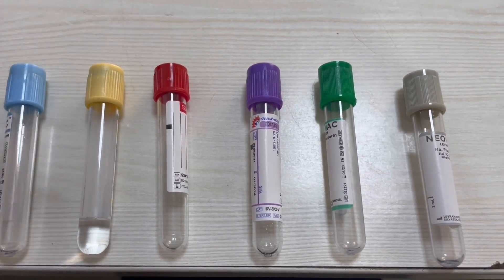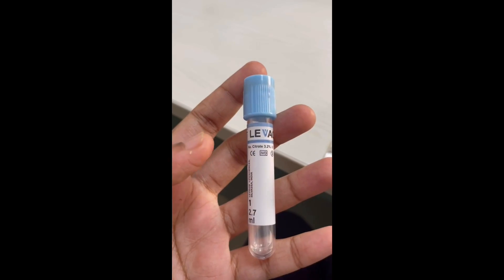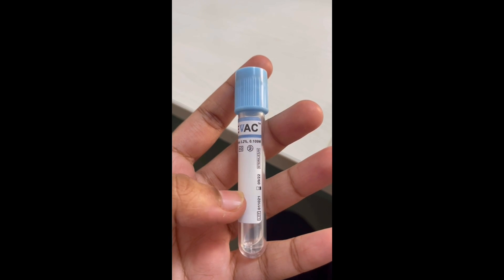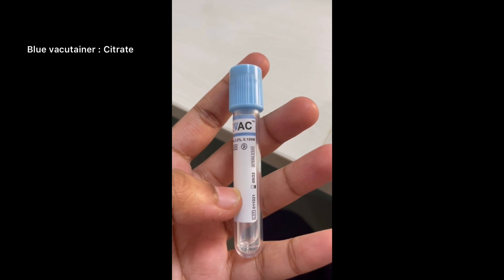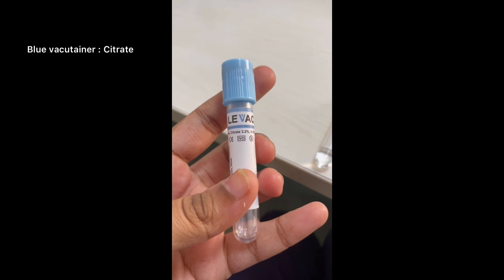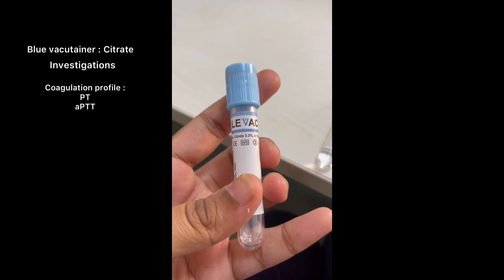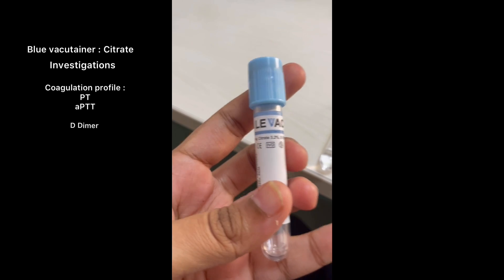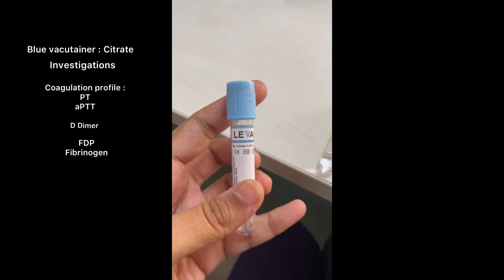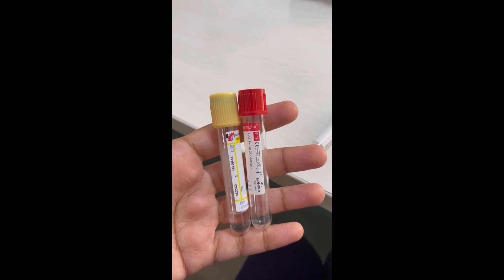You need to know which vacutainer is used first and which goes last. The first vacutainer is the blue one, which contains citrate. Citrate has an anticoagulant effect, so for investigations like coagulation profile — PT, APTT — and when you want to estimate D-dimer and fibrinogen or FDP levels, we use the blue color vacutainer.